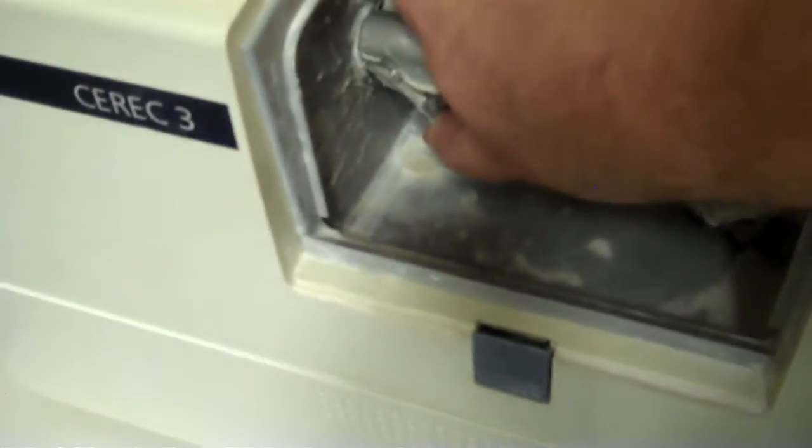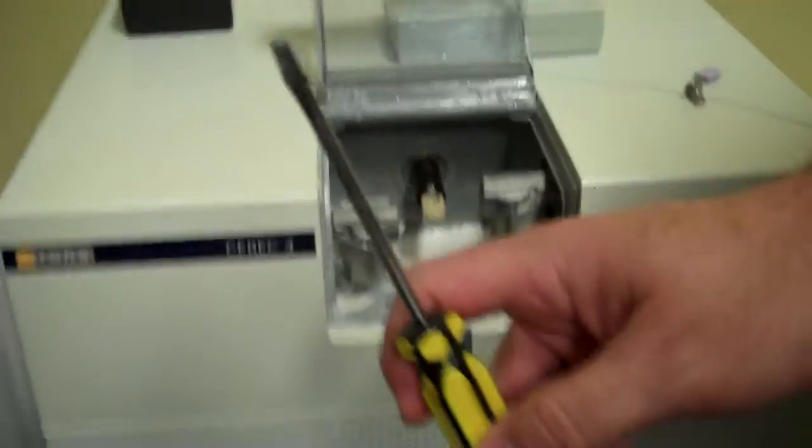And these little knobs there, right there, push that button in, but they no longer do that. So what you have to do is come here and I'll let you hold this. Pull it forward just a little bit past that. You take a flat head screwdriver.